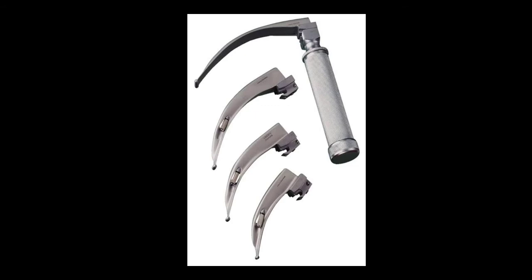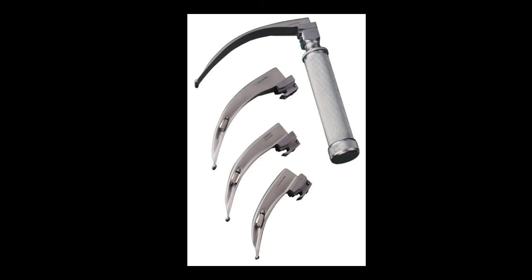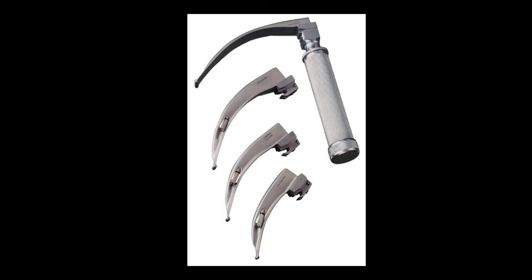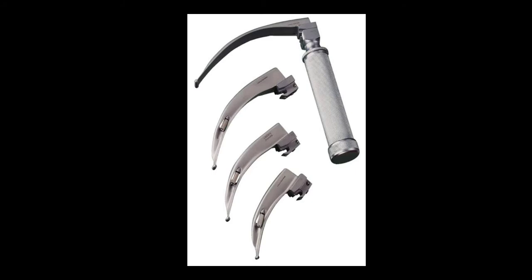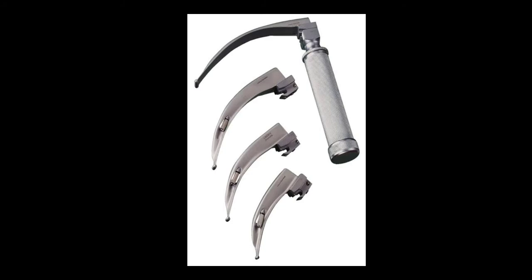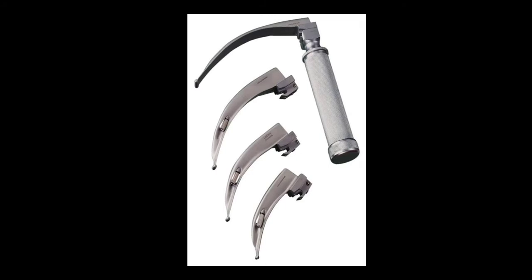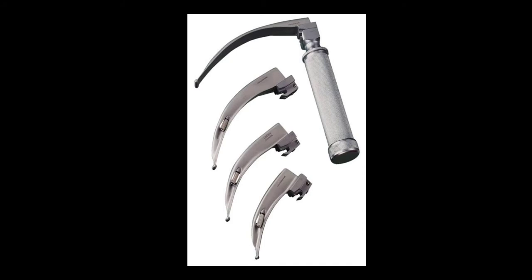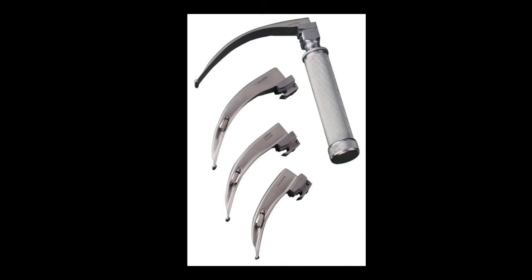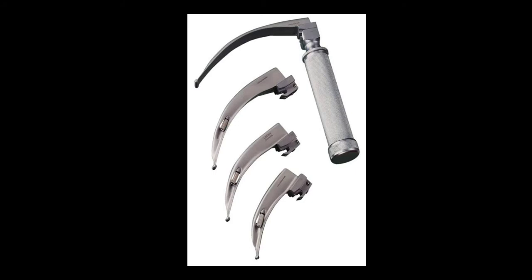The next is the laryngoscope. This instrument also uses light. These are the different sizes of blade — one for small children and one for adults. This is used for visualization of the larynx, and especially for endotracheal intubation. When a patient is connected to a mechanical ventilator for artificial ventilation, an endotracheal tube is inserted and the laryngoscope is required to see the larynx.